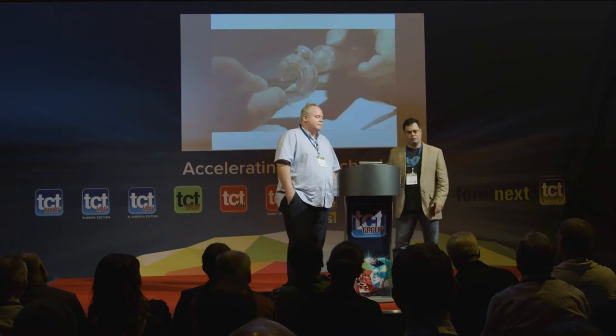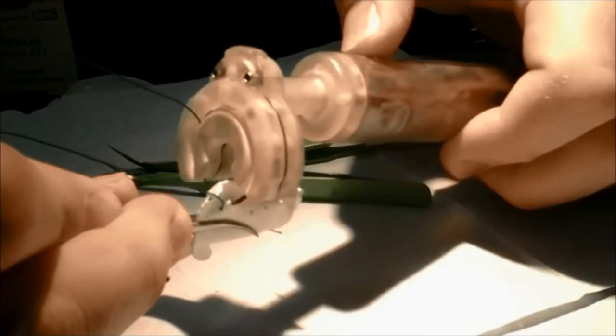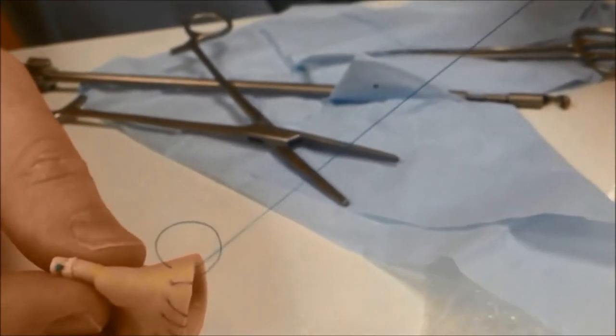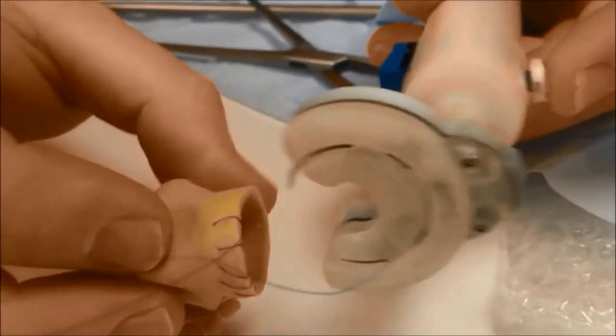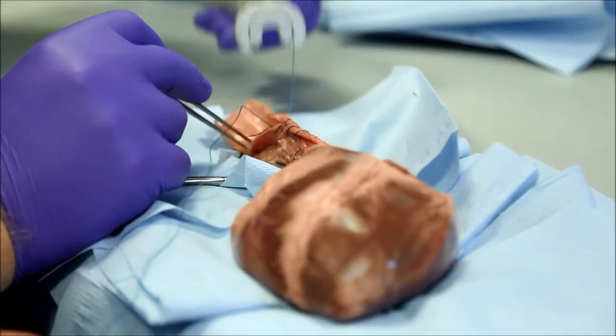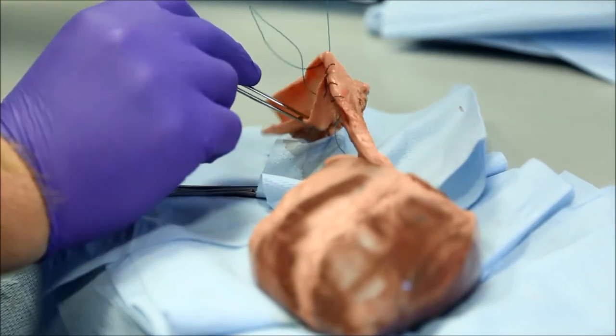So as a brief history, we've designed a device that does stitches, suturing, automatically. We have several different sizes of the device and it's based on a core component in the device being able to be applied to different sizes and different types of needles.